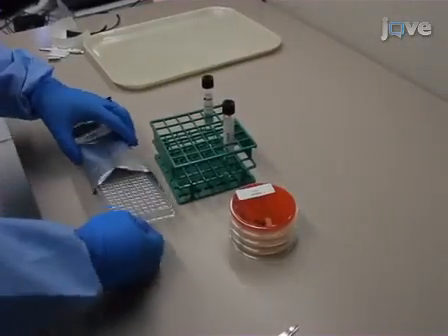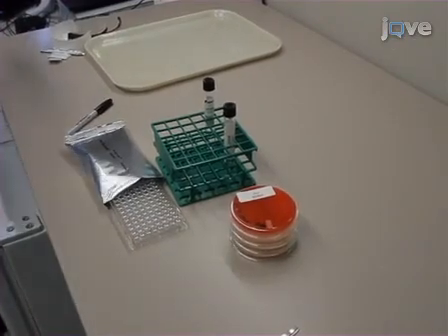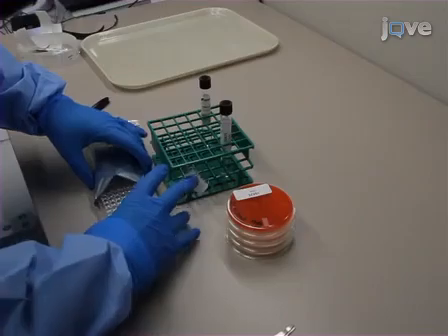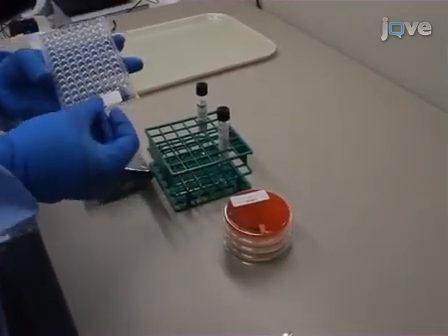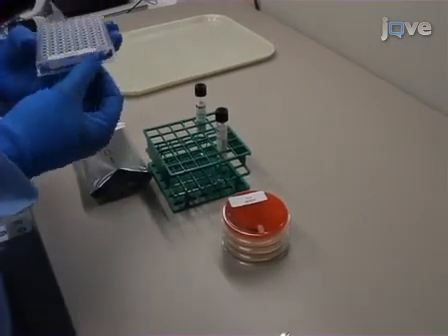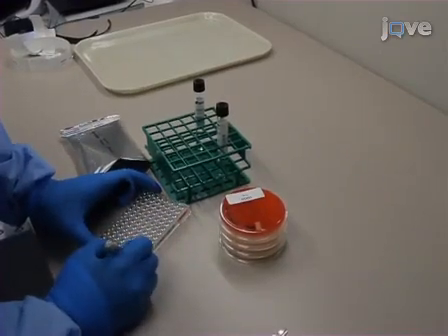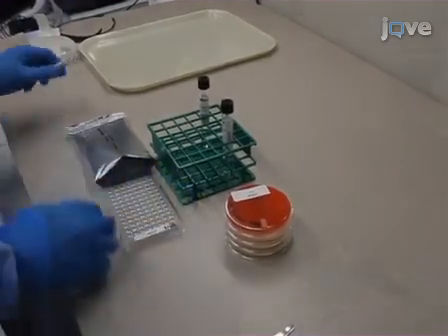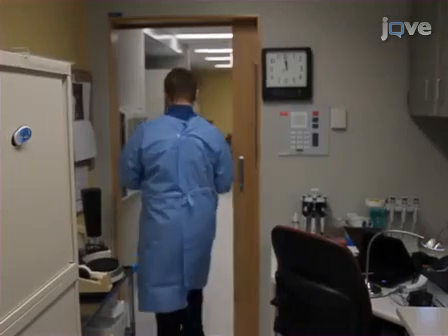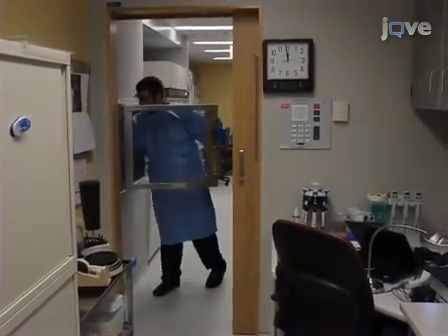Working on a laboratory bench, prepare for this procedure by labeling a blood agar plate, 3 Middlebrook 7H10 plates, a saline tween glass bead tube, and a microtiter plate with the patient's name and specimen identification number. Additionally, label the blood agar and 7H10 plates as purity check. Label one of these 7H10 plates as 1:1 colony count, and the other as 1:50 colony count. Then place the tray in the pass-through.